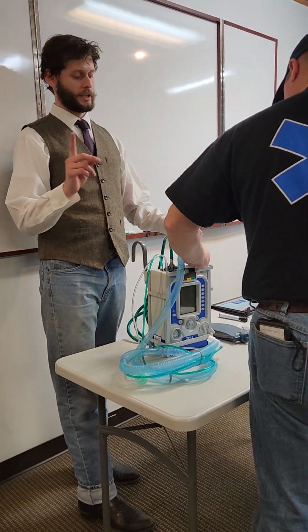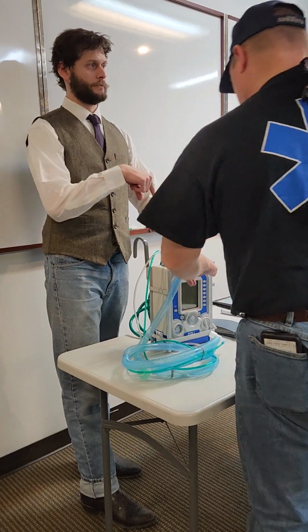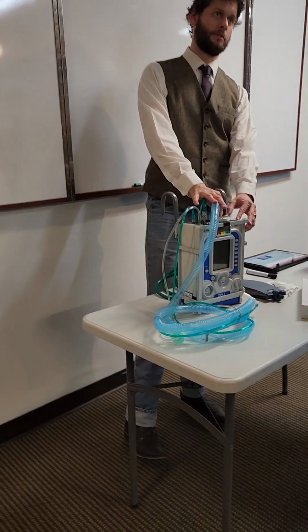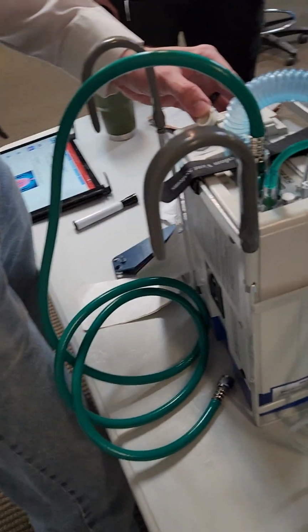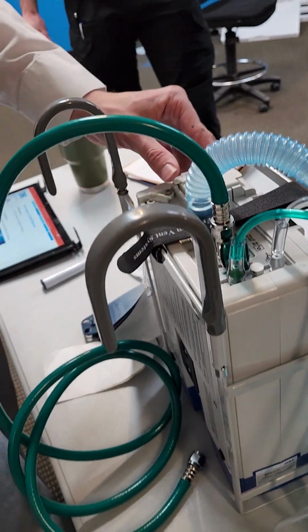The one thing I do want to say is that the plug-in power. When you go to plug in the power, you grab it straight down here, and you pull it straight up. There's no twisting, no turning. It's in and out. Don't twist anything on the top. Nothing. Just pull it up. Don't break the power source.